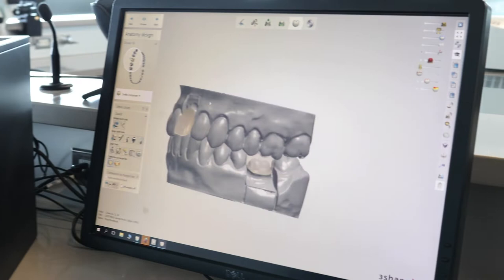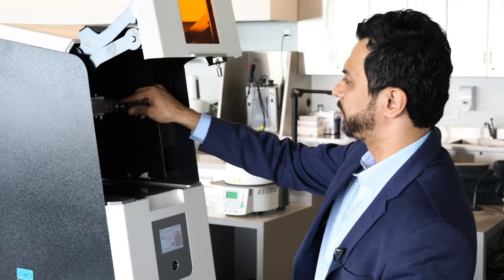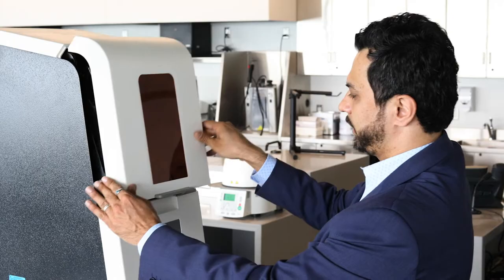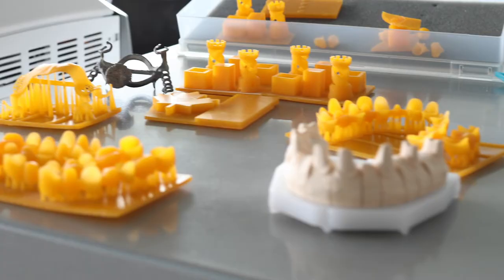What we do is we have our prosthesis or the models get scanned into the scanner, and it subsequently goes into our software. Then from there on, we have a 3D printed prosthesis that later on we go ahead and either cast or have it milled for student projects.